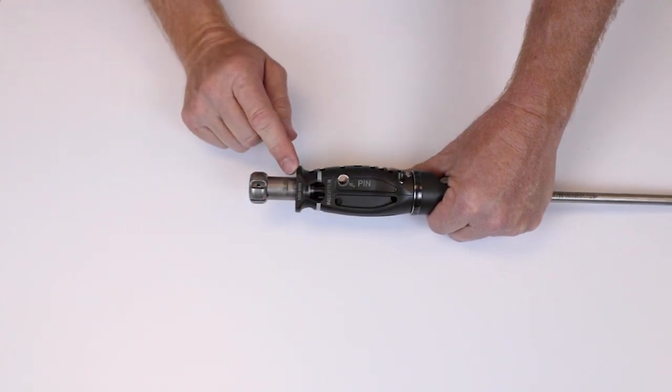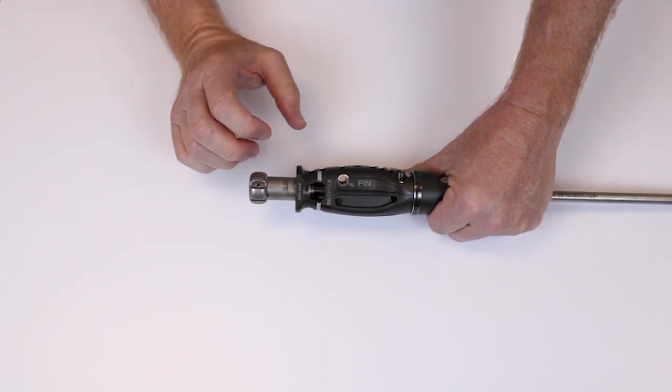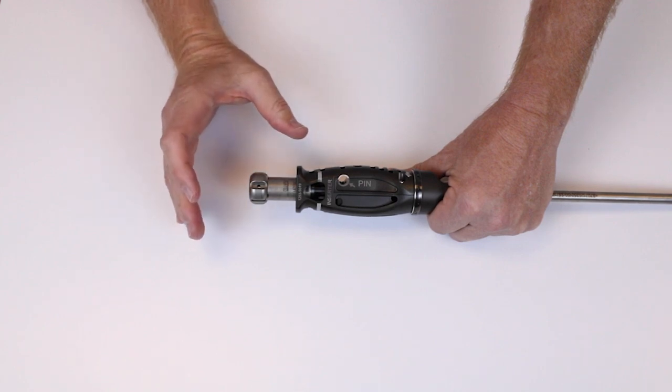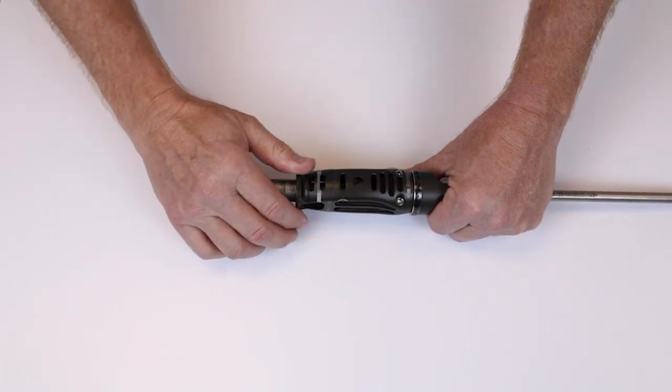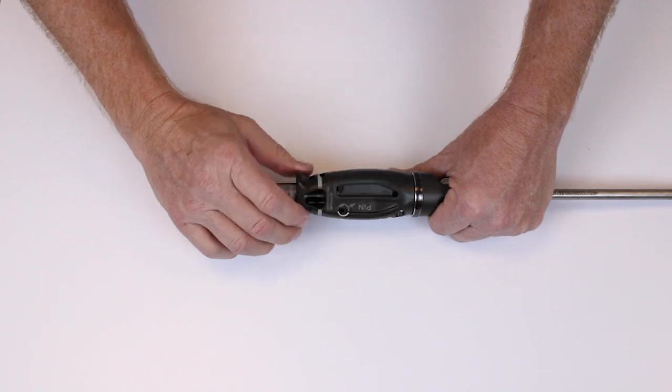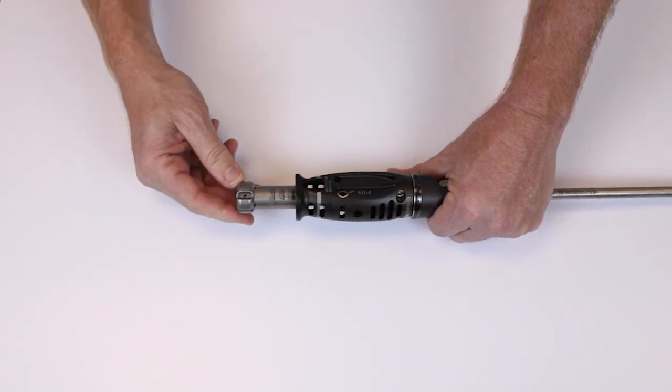You'll see that the lateral line is shown. That means I've completed lateral expansion and then I can continue on through vertical expansion.